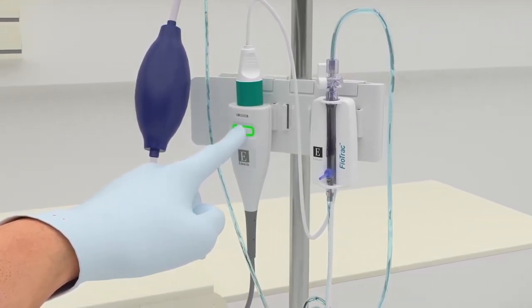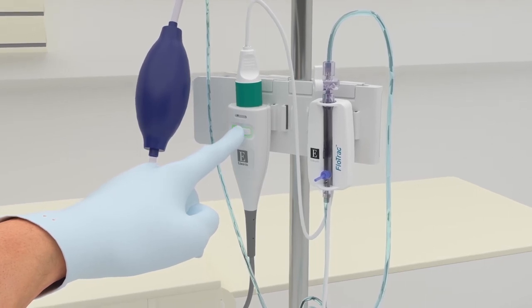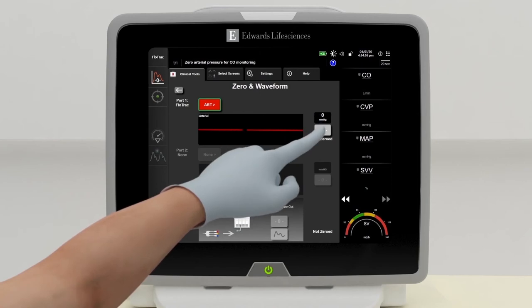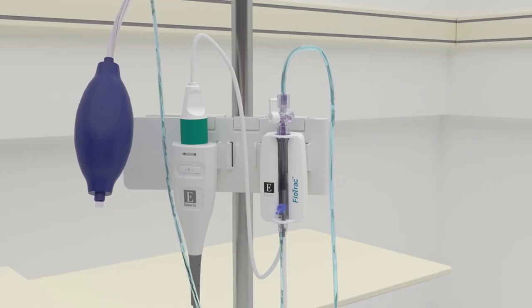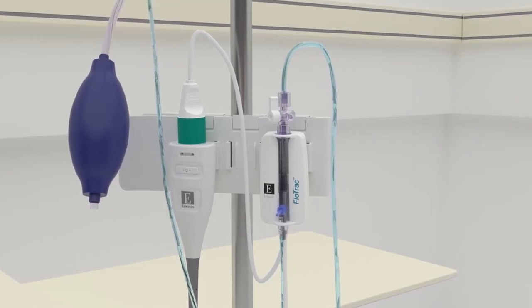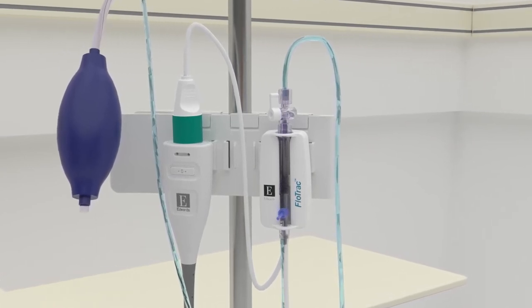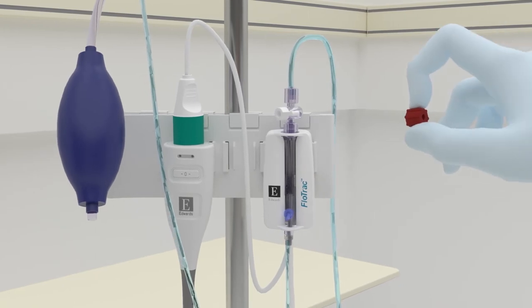Hold down the zero button for an additional three seconds to zero, or press the zero button on the screen to zero. Zero the bedside monitor to the atmospheric air per monitor's instructions. Return the stopcock to original position and replace cap.